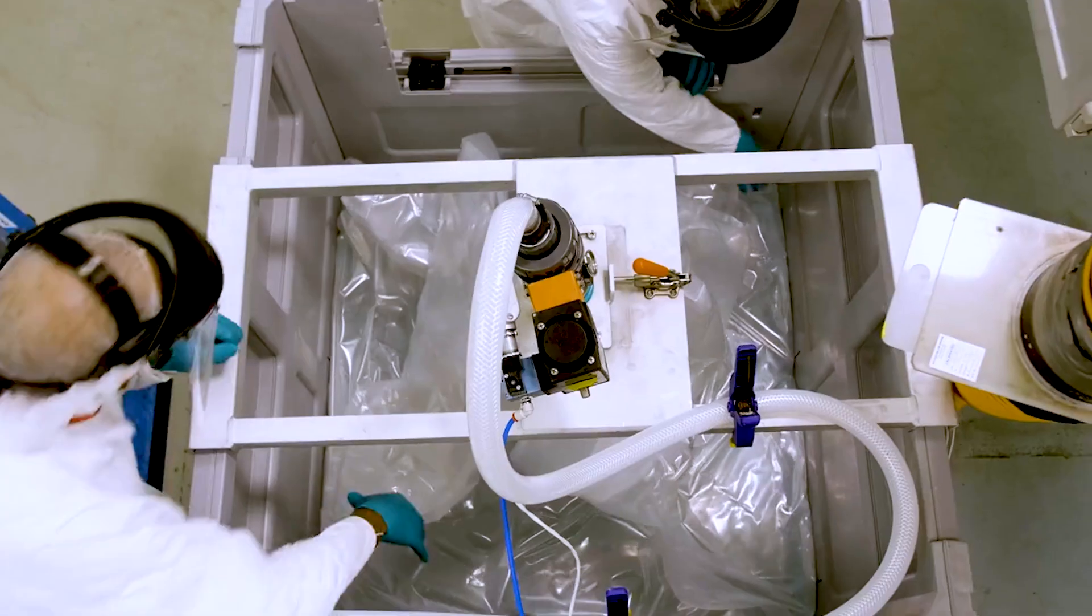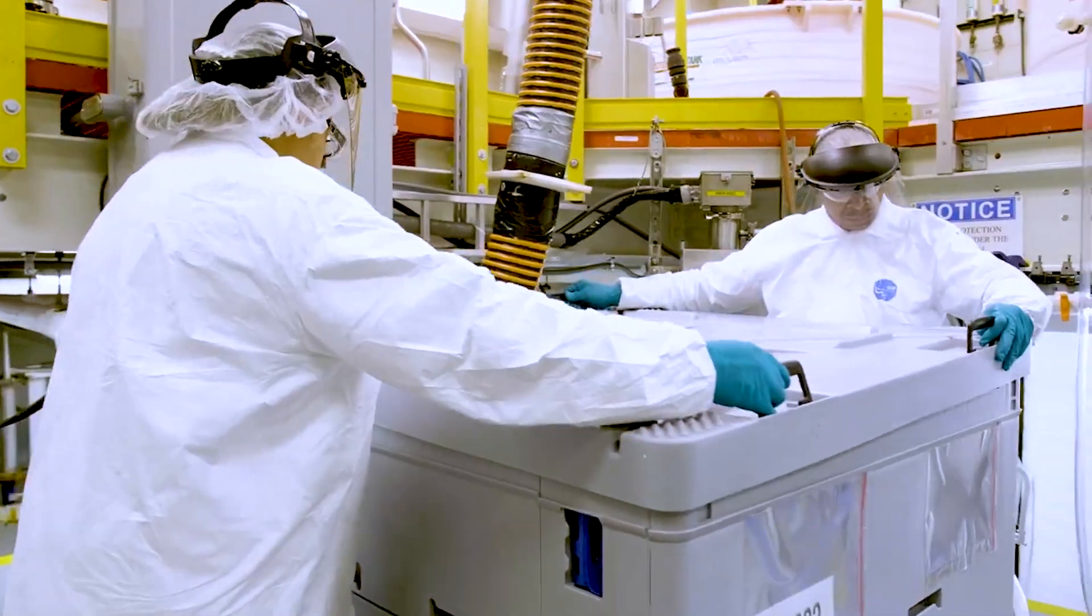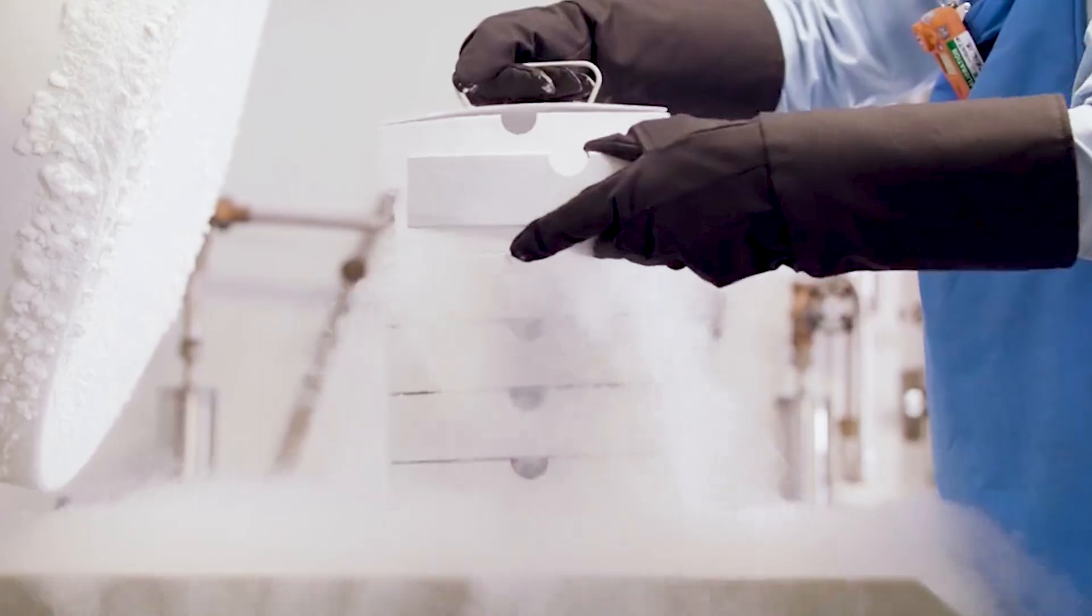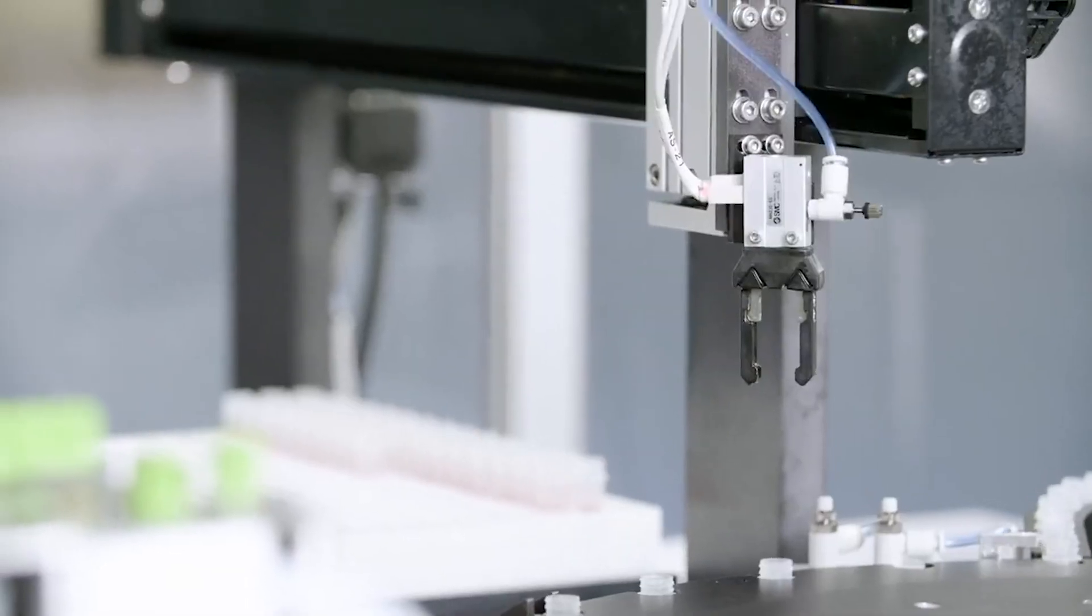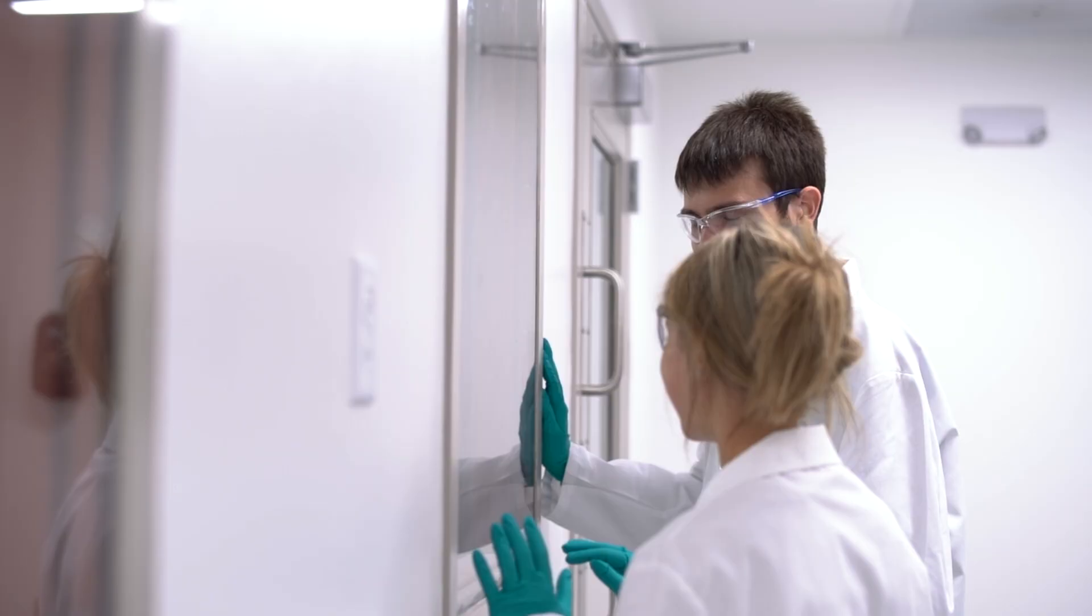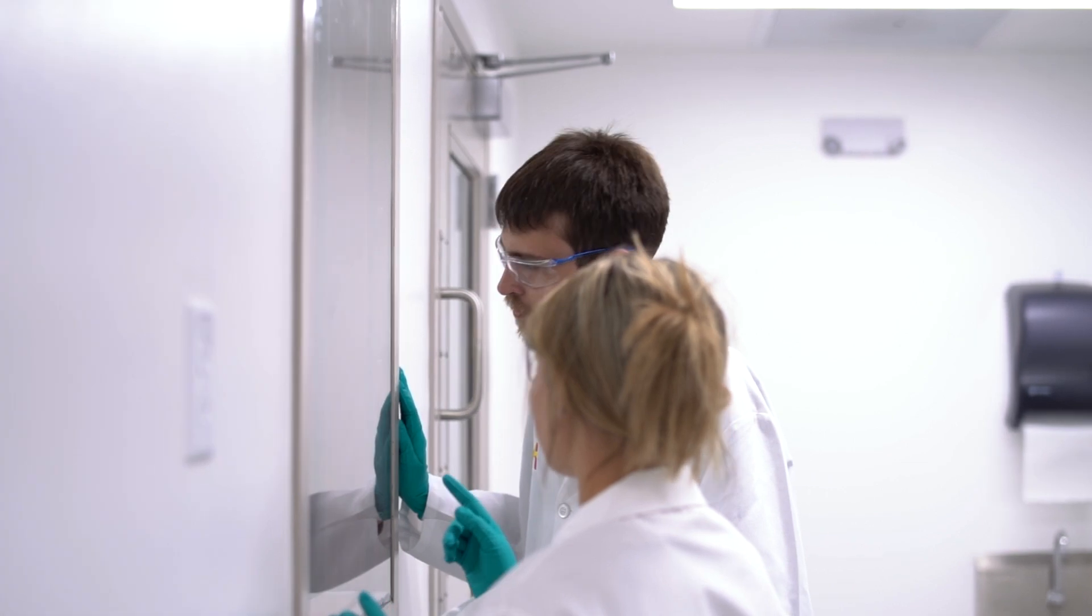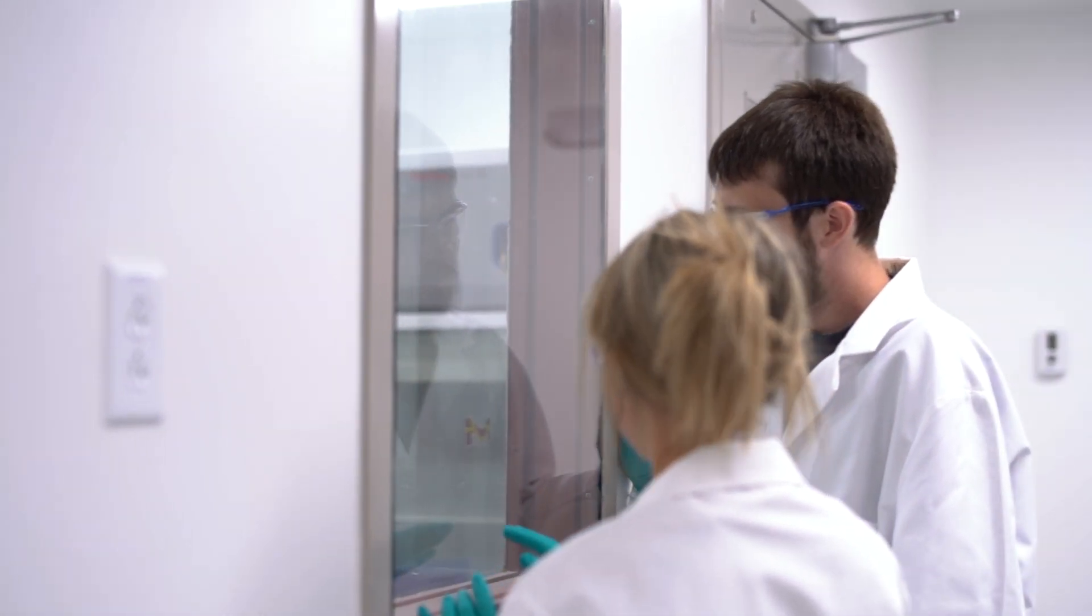We, at Millipore Sigma, have extensive technical and regulatory expertise to support customer lateral flow assay commercialization with full OEM services or fast-access technical troubleshooting support during development.